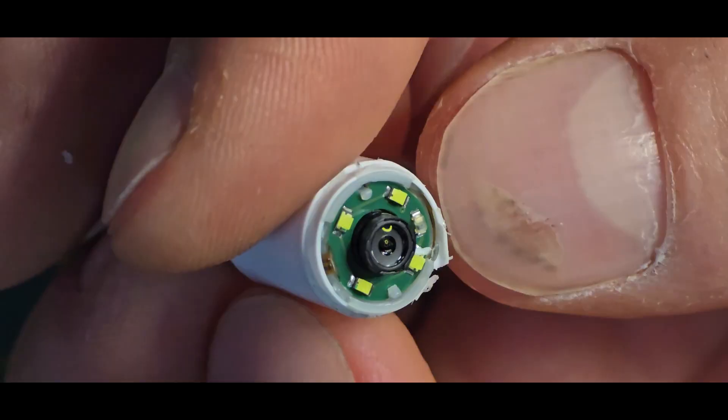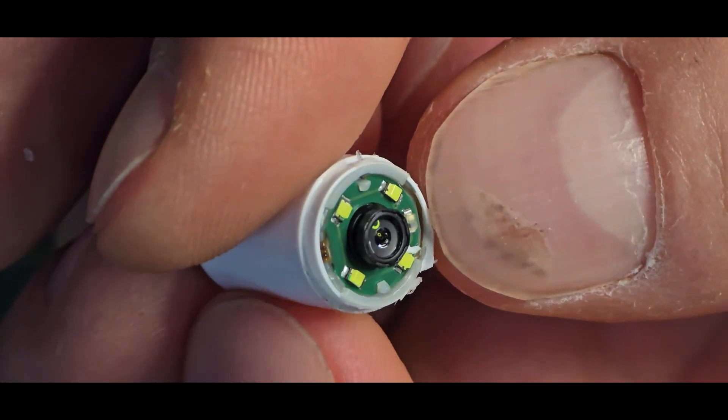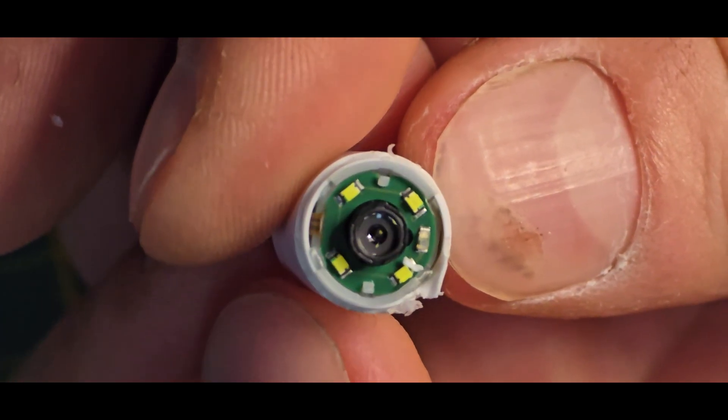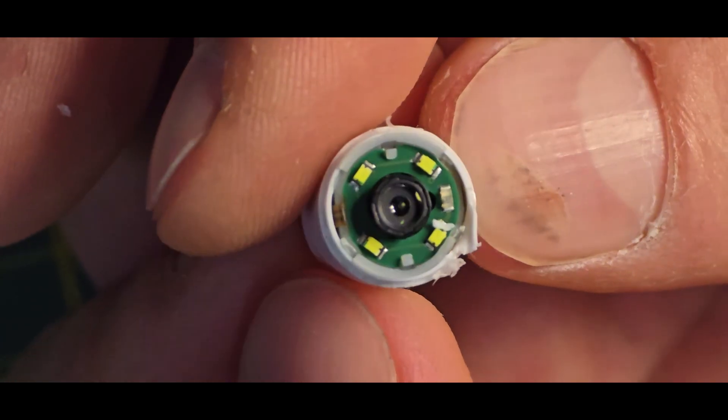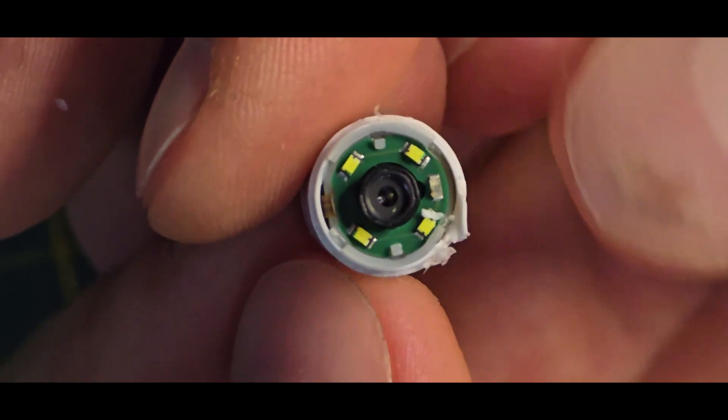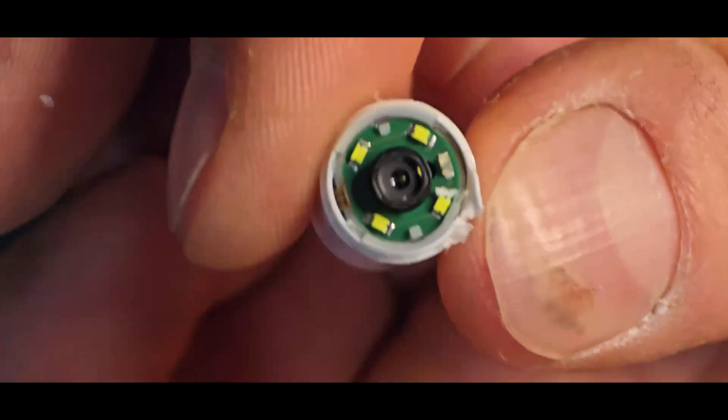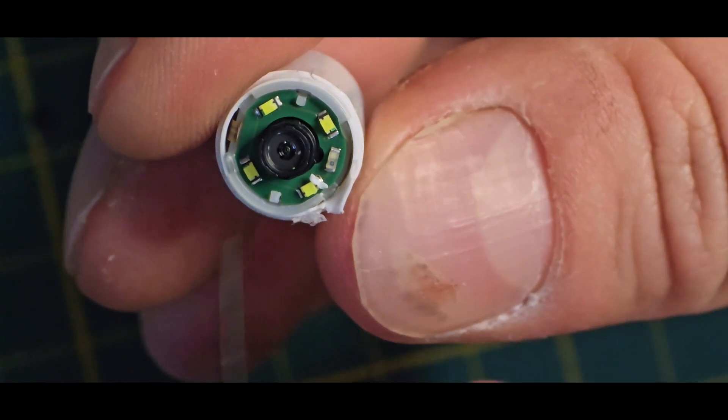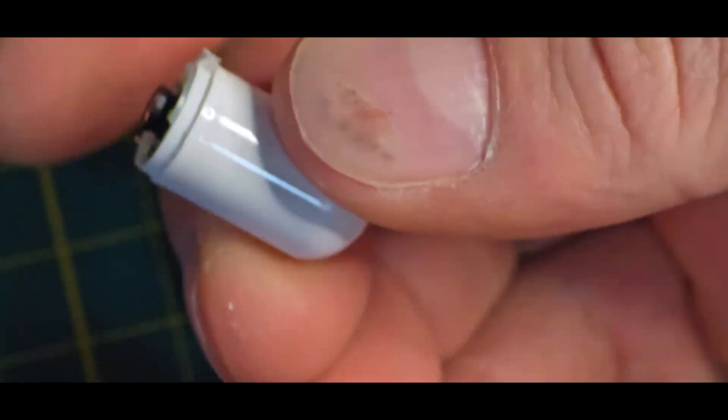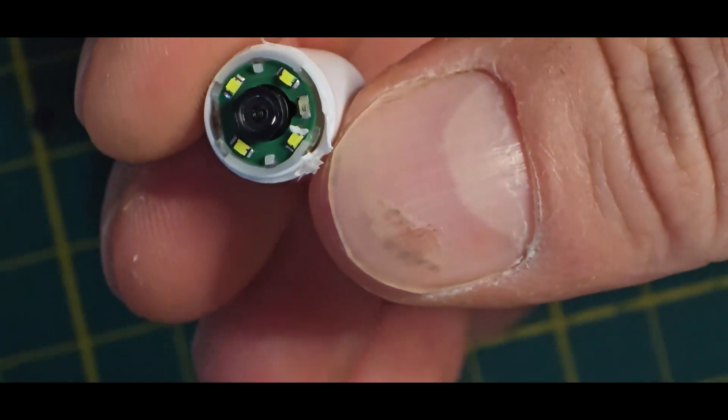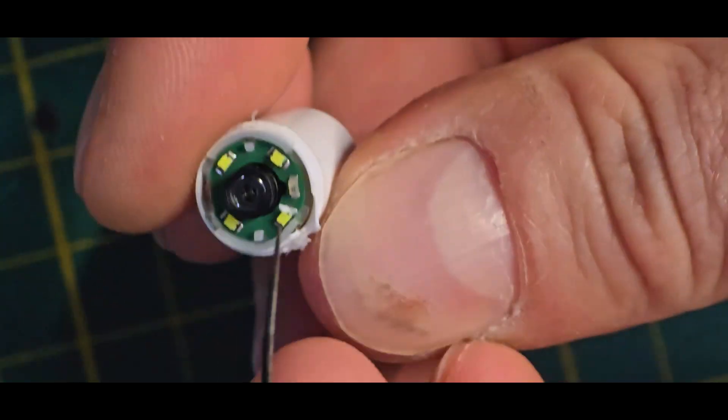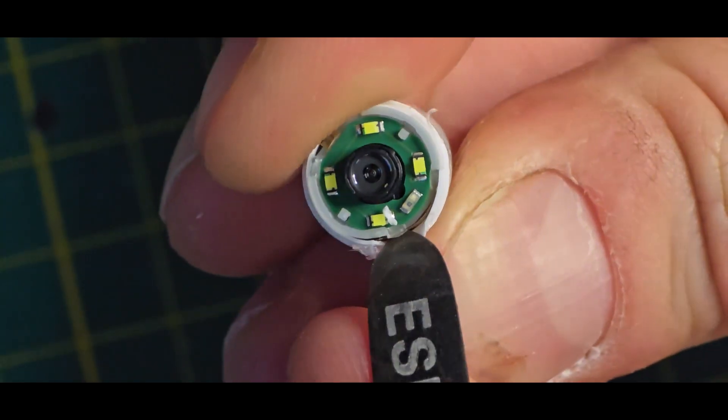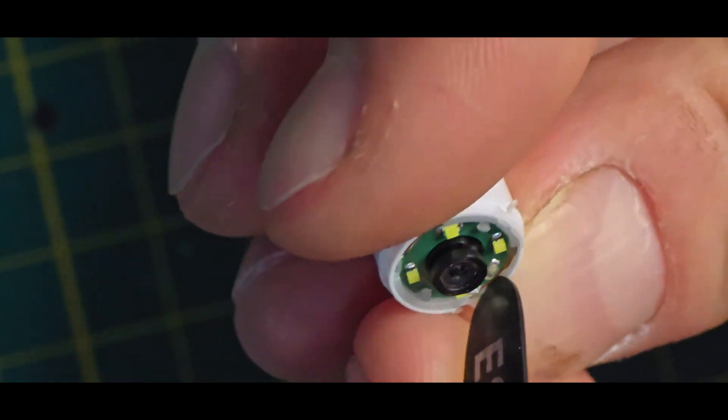So this extra LED type thing really looks like a light detection. So maybe this will turn on the LEDs if needed or that way it is activated because if it is maybe inside of an enclosure which is dark all the time and you open this pack, it sees light and it will activate that way because this is definitely a one-time use product.